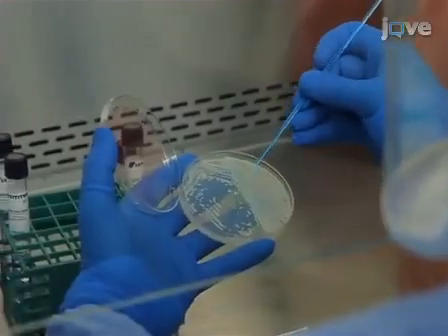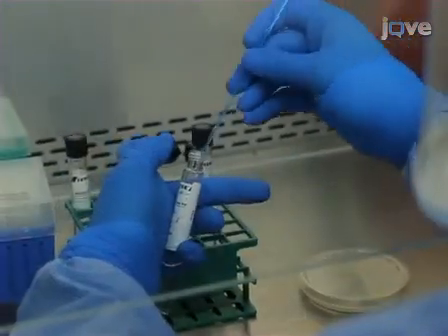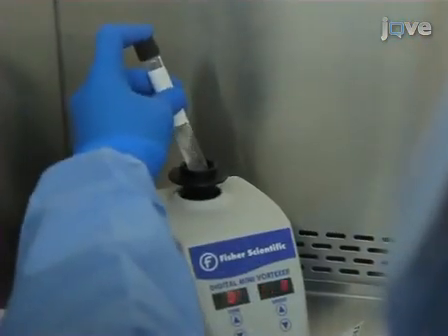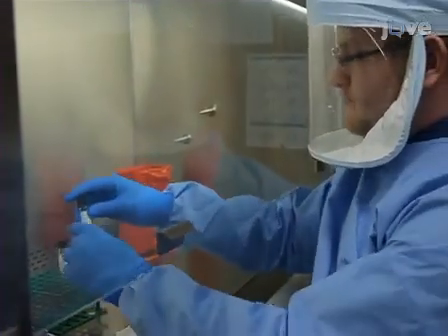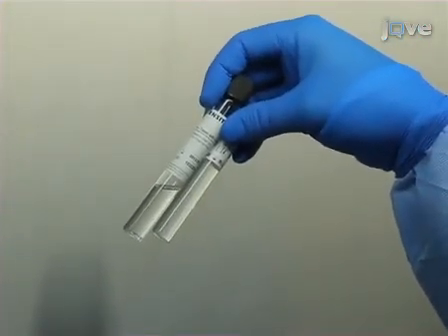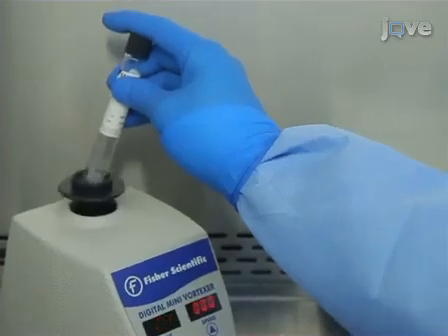Prepare inoculum from a solid medium culture from a patient's specimen. Use a sterile loop to scrape the colonies and transfer them into the saline tween glass bead tube. Vortex the suspension for 30 to 60 seconds. Visually inspect the sample, comparing it to the McFarland standard. The amount transferred should be equal to or greater than the standard. If not, add more of the bacterial sample and vortex again.